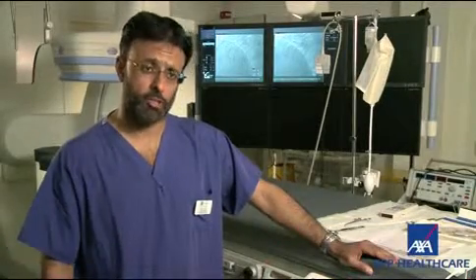We're currently in the cardiac catheter lab here at this hospital where we perform a number of procedures which allow us to make diagnoses and also treatment of a number of cardiac conditions. The sort of patients we might see include patients who have problems with heart rhythm disturbances, problems with the heart itself or the arteries of the heart, and each of those can be treated using interventional procedures performed here.